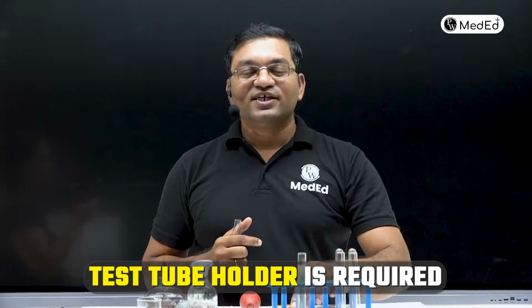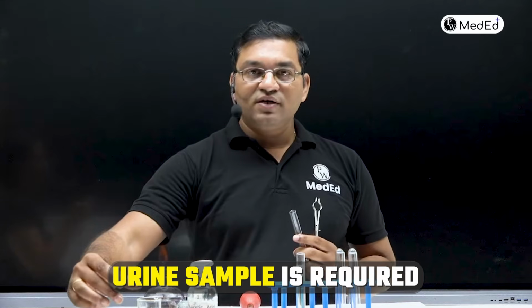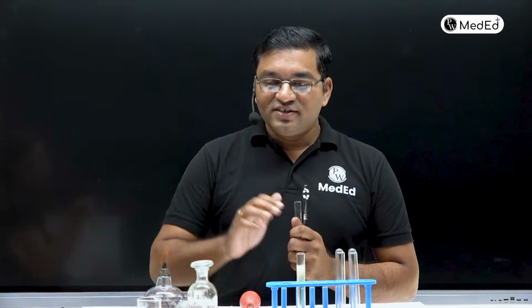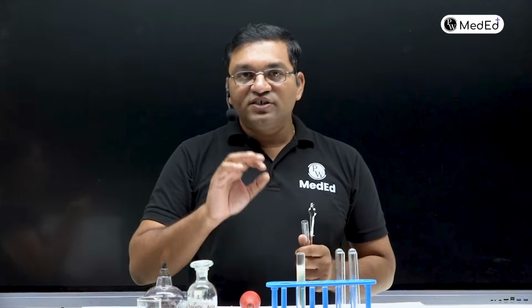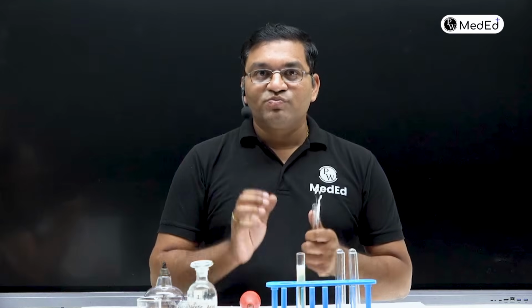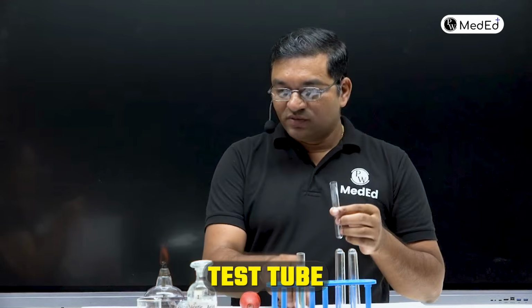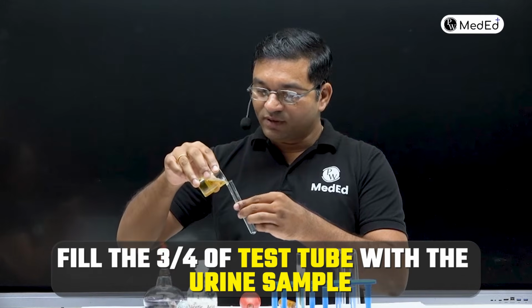Test tube is required, test tube holder is required, then urine sample is required, spirit lamp is required. Okay, and generally acetic acid is not required, but it is helpful to differentiate between protein and phosphate. Got it? So take a clean dry test tube, and fill 3/4 of the test tube with the urine sample.